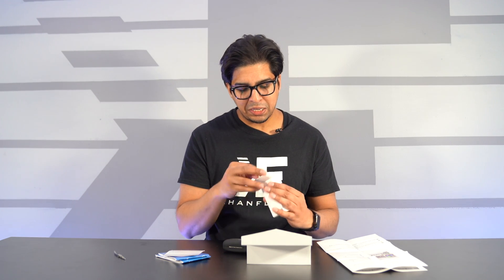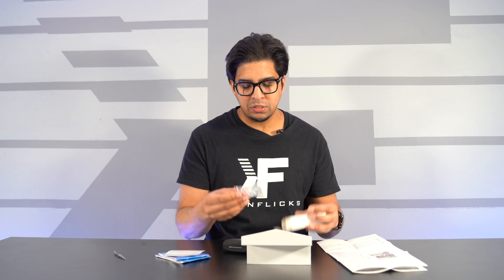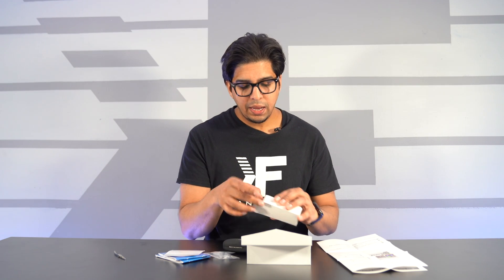So this here is our Nano and this here is our accessory kit. The accessories include some extra ear pieces, which is nice, as well as a tool and a brush to keep it clean and take care of it. The Nano itself comes in a nice-looking pouch — almost like a sunglasses case — with the Nano logo in gray.